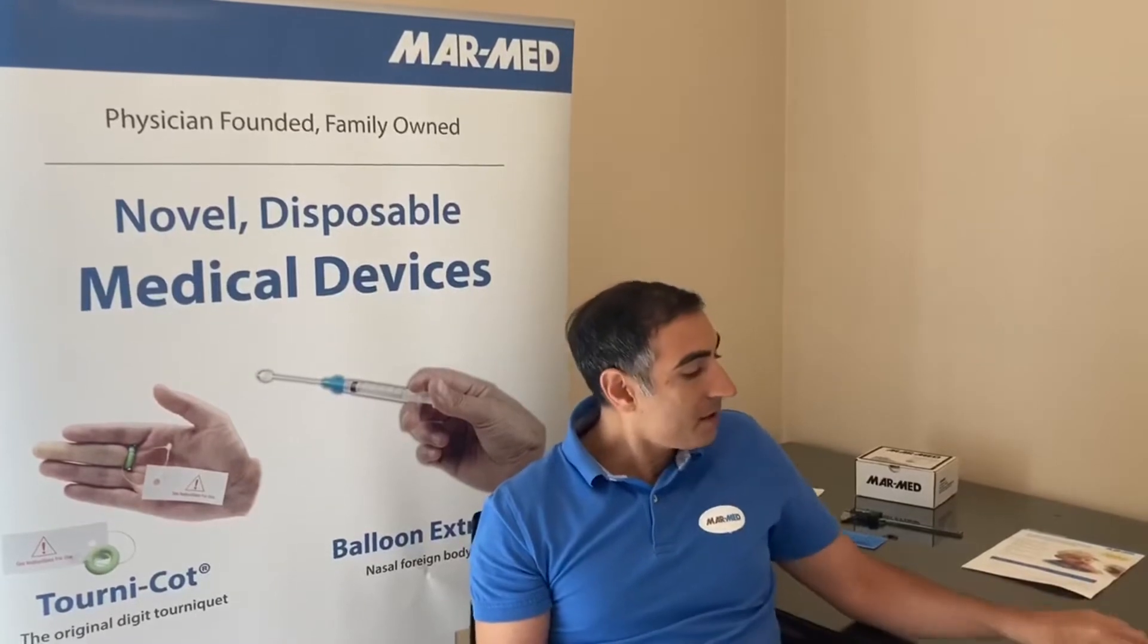Jerry Merrigo here with MarMed and as you know we recently improved our balloon extractor nasal foreign body removal device. In this video I want to show you directly how our device here in red and blue compares against the more costly competitor here in white.